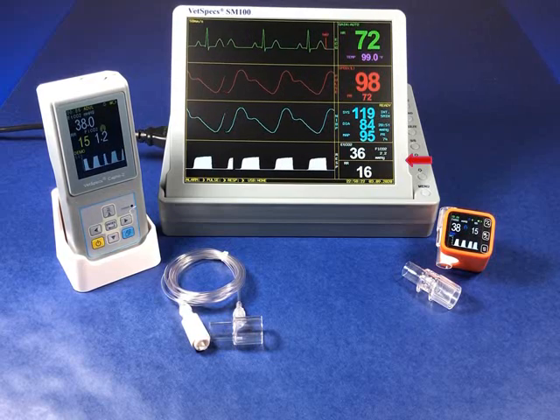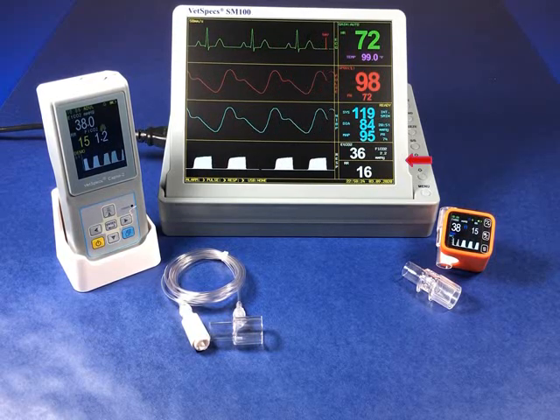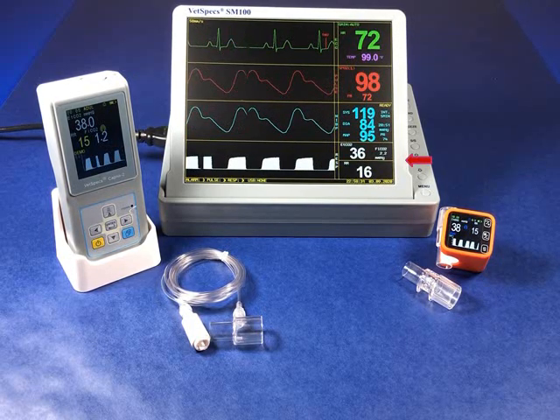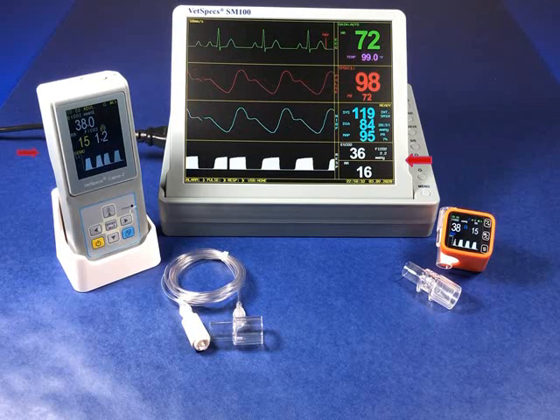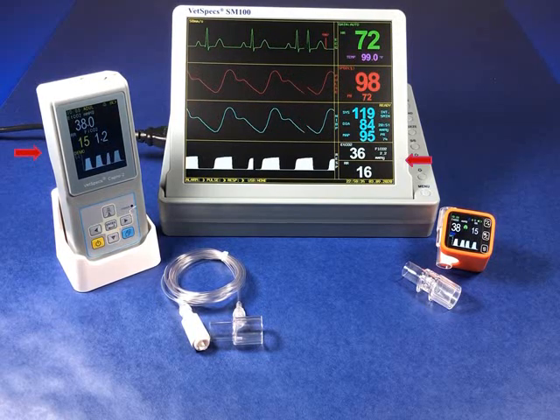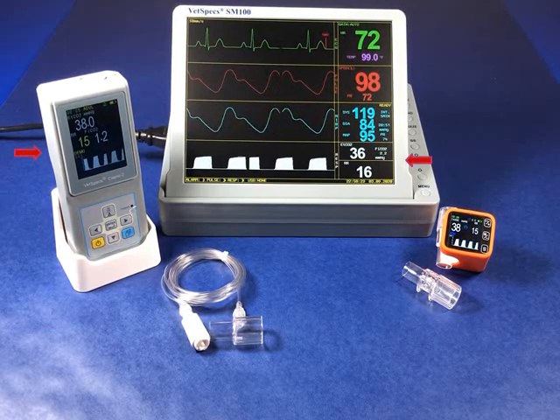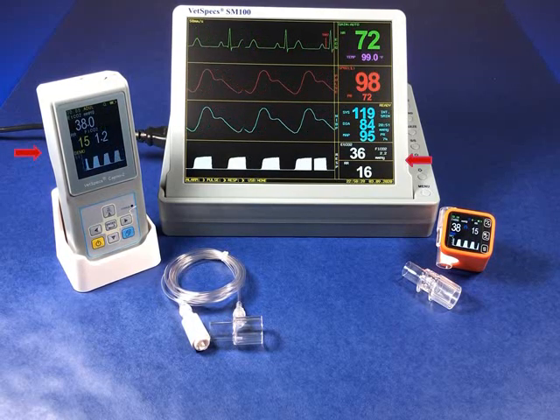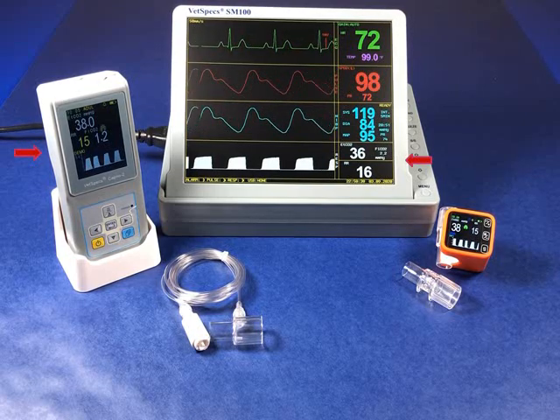Versatility is the root of our inspiration for wireless connectivity with both CAPNO2 and CAPNO-M units, each of which may be utilized independently or paired with the SM100. For example, the handheld CAPNO2, featuring the latest in microflow sidestream processing, is ideal for use in virtually all anesthetized patients, including those in moisture-rich environments such as dentistry.